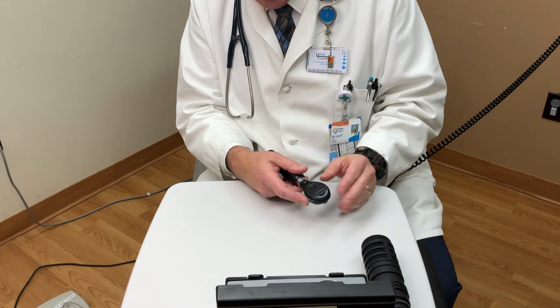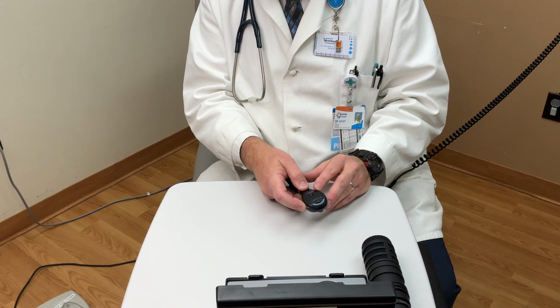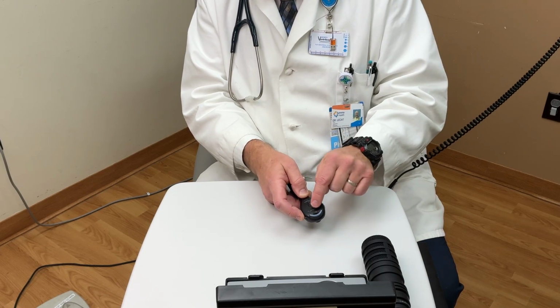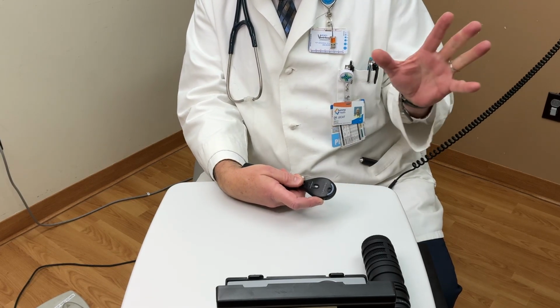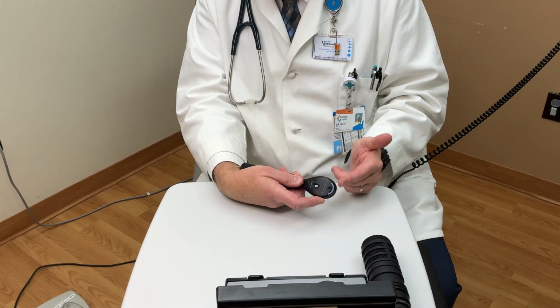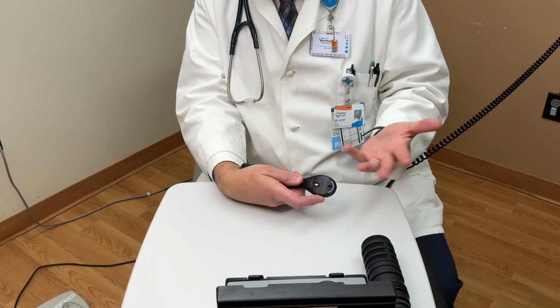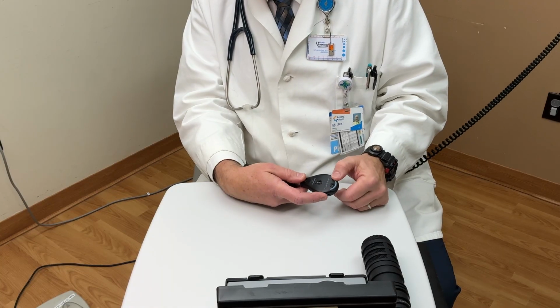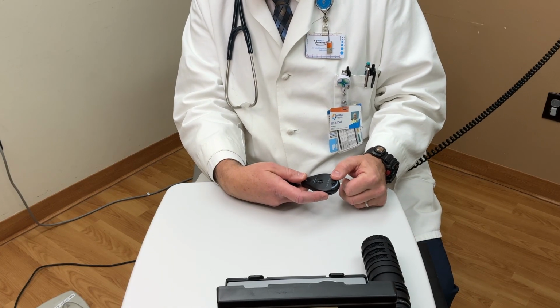But anyway, the way to figure out your lenses and what the setting here is to look through the hole at something on the wall with print on it. And then you can adjust those lenses until the image appears clear, just like you would at the eye doctor. And that's your setting. Now you can ask the patient to do the same.